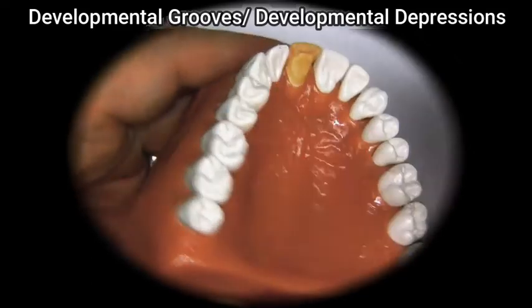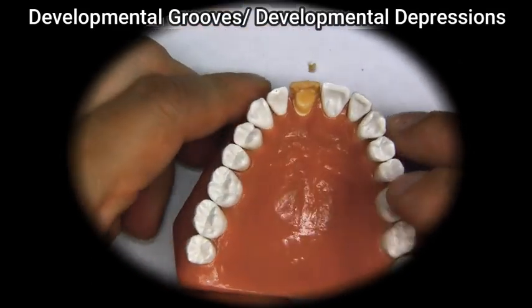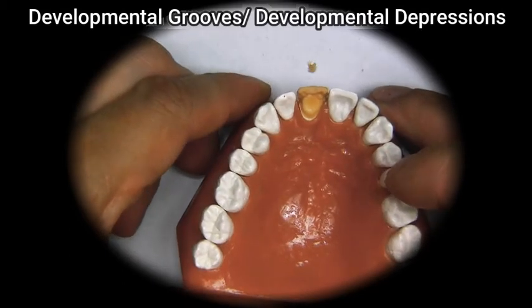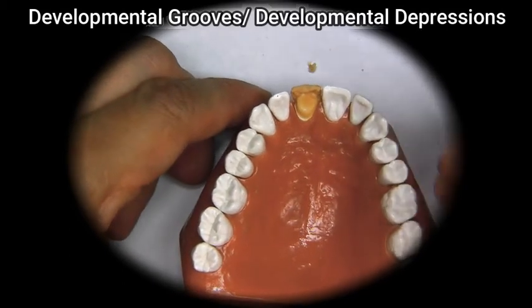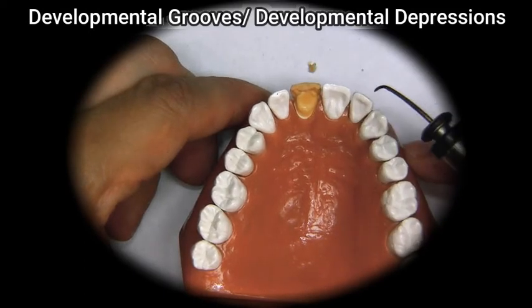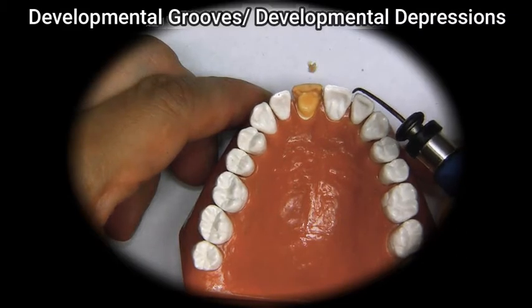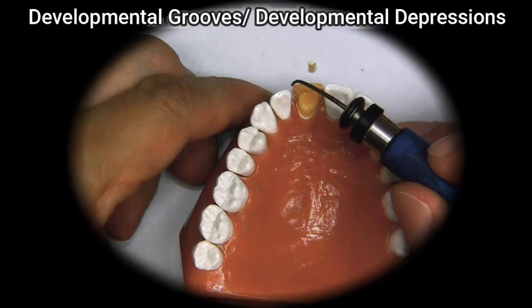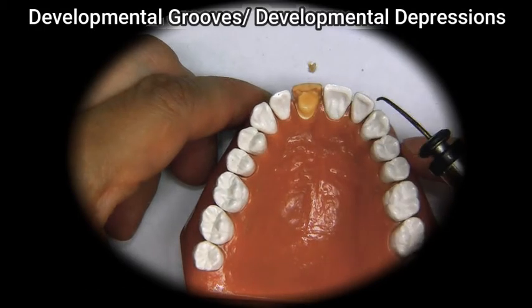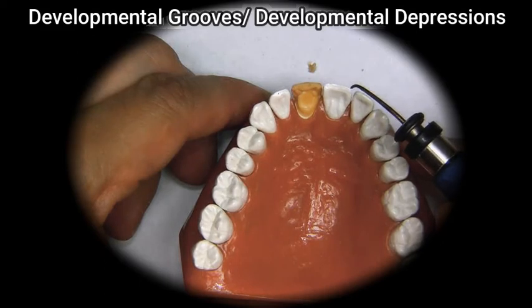Now we look at it from the lingual portion. Let's see where we are here. Now here we can see that the distal corner is a little bit further in than the distal corner of number 9. So we're going to have to add a little bit right here to bring it out so that it looks more even to this tooth.